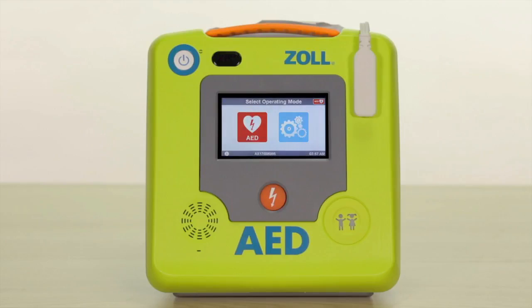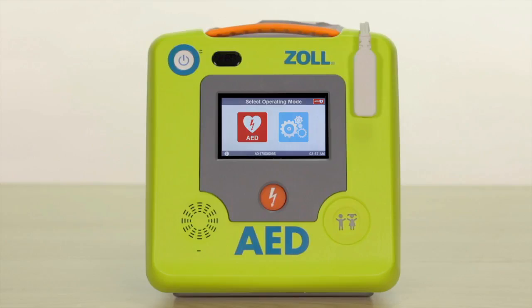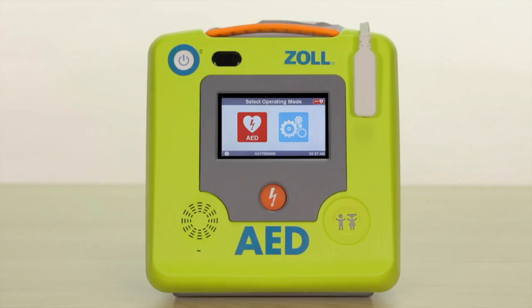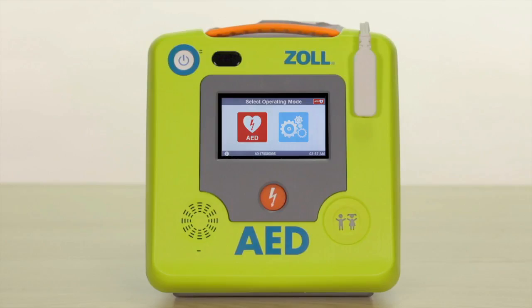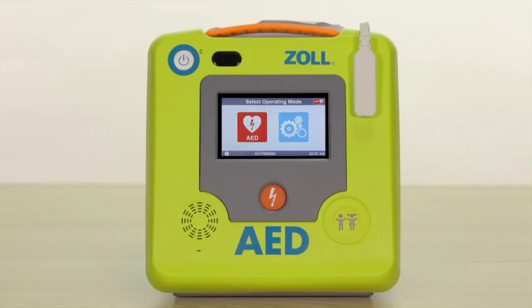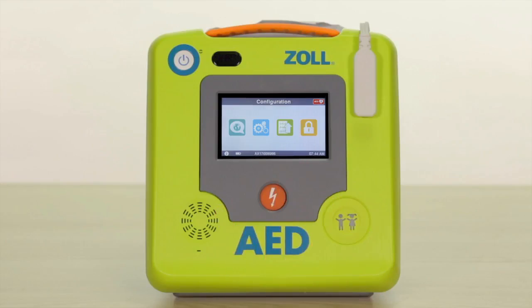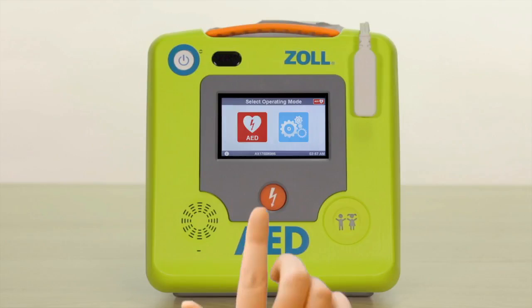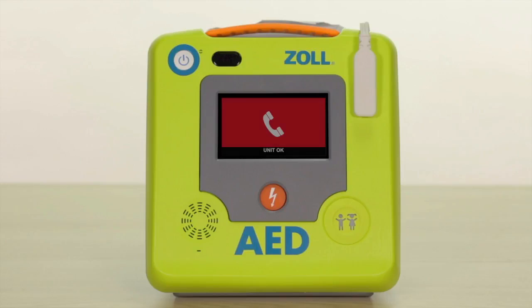The AED will now display two large icons: a blue gear icon and a red heart icon. When this screen appears you will receive prompts indicating the type of AED you have, such as automatic defibrillator, and it will also indicate unit OK. When selected, the blue gear icon will bring you to the basic configuration screen. The red heart icon will immediately place the AED in rescue mode and begin rescue prompts.